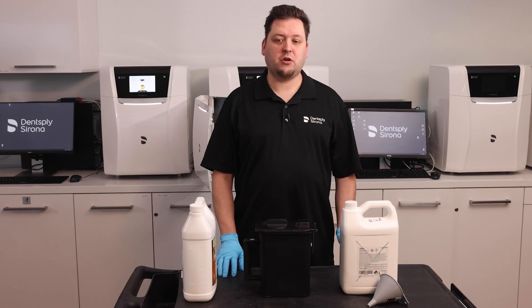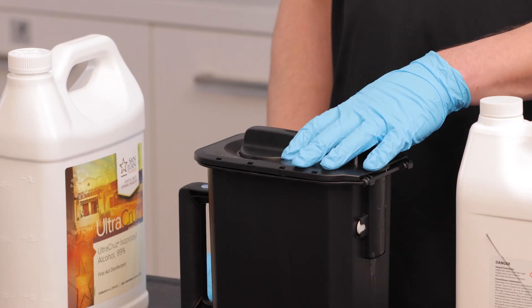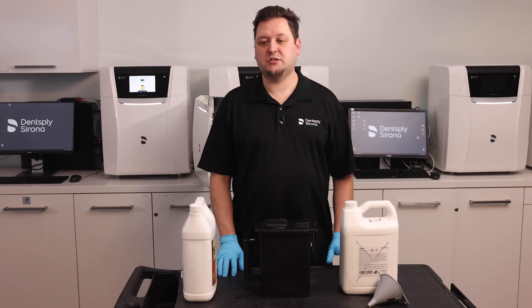Hello. Today we're going to show the process to replace the isopropyl alcohol from within the PrimePrint's washing containers.